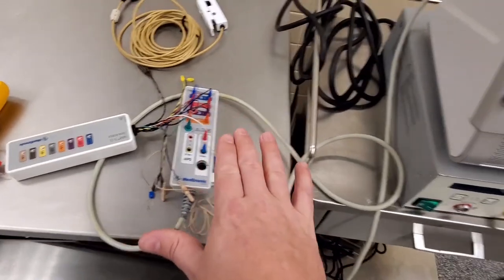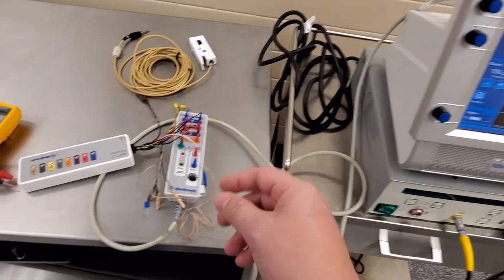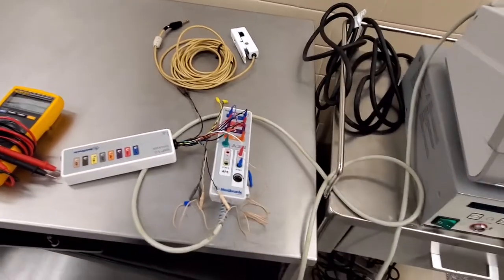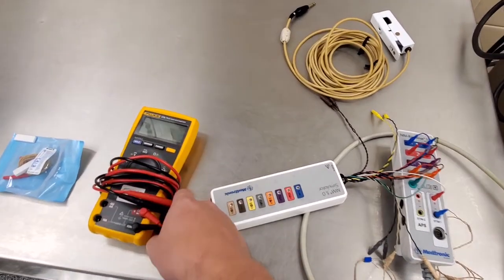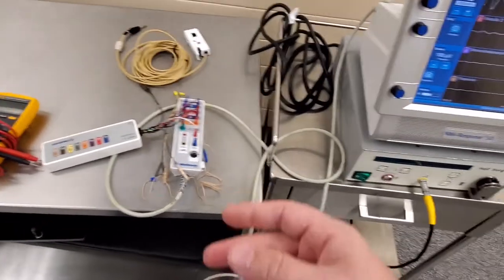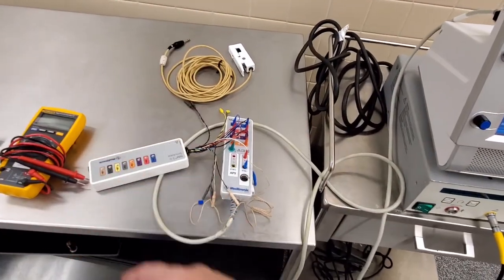So we know that the pendant is good, all this cabling is good, we know that the pencil, the sterile pencil, is good, which is most important. And it's almost exactly like when you use your multimeter. You should always check the leads by putting them together before you start doing continuity or current checks.